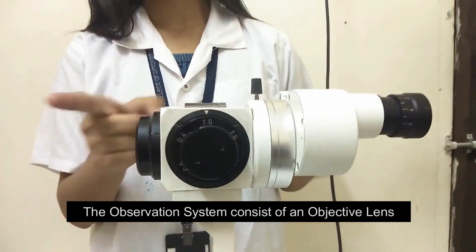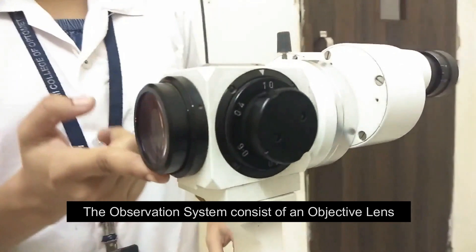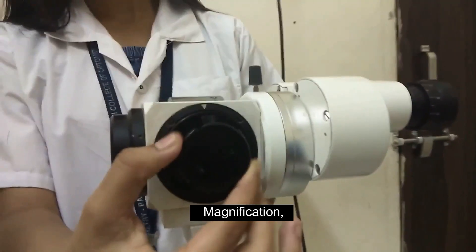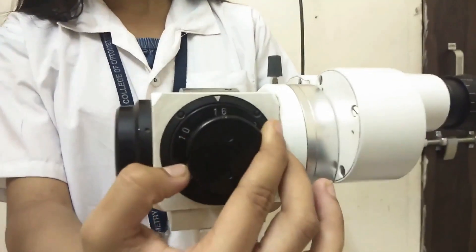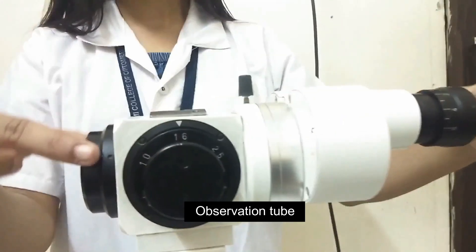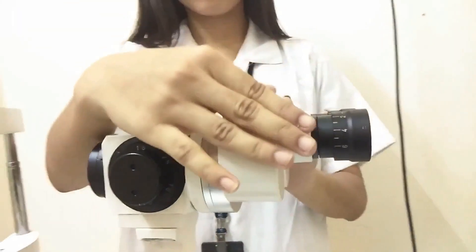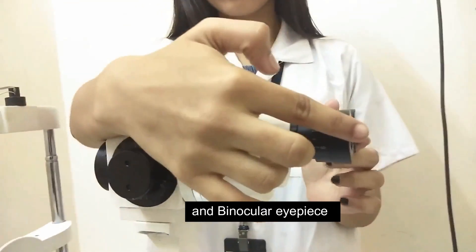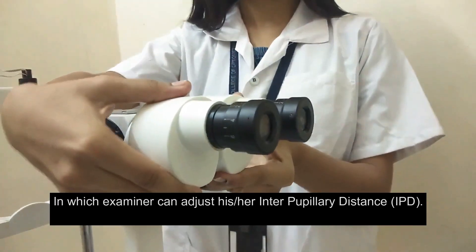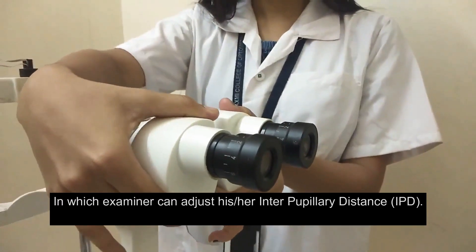The observation system consists of an objective lens, magnification, observation tube, and binocular eyepiece, in which the examiner can adjust his or her IPD.